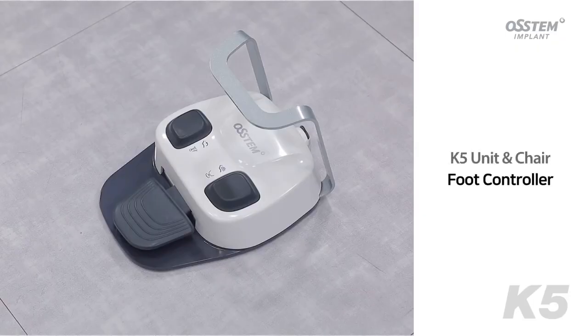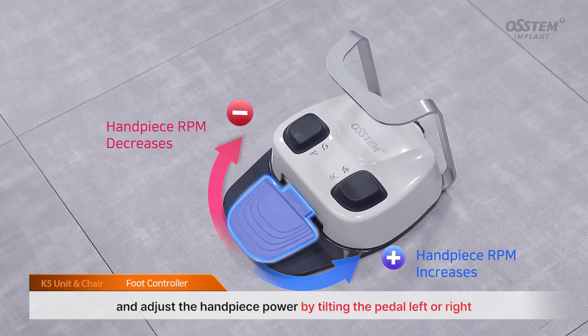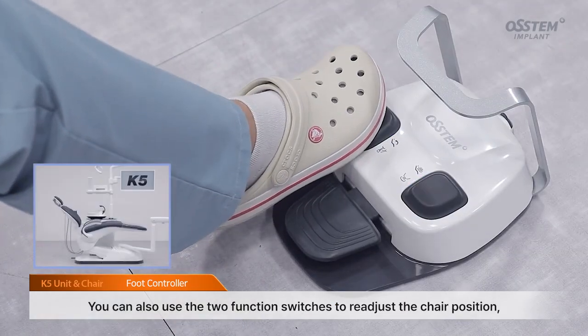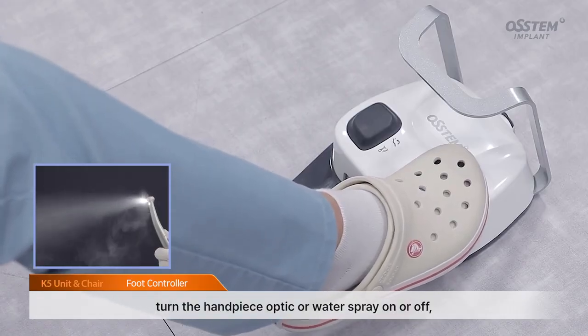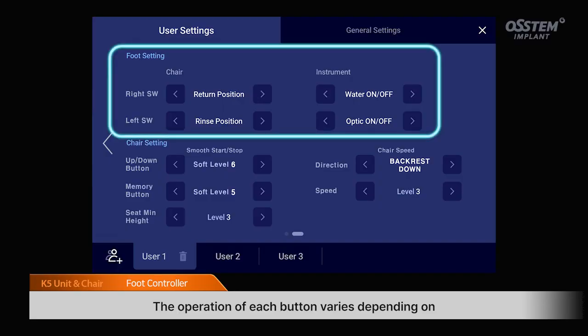Foot controller. You can operate the handpiece and scaler by pressing the pedal on the foot controller, and adjust the handpiece power by tilting the pedal left or right. You can also use the 2 function switches to readjust the chair position. Turn the handpiece optic or water spray on or off, or use the handpiece as a chip blower. The operation of each button varies depending on whether the handpiece is placed in the holder and on the functions assigned to the left and right switches.